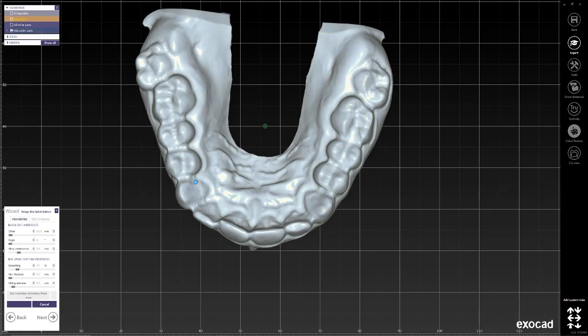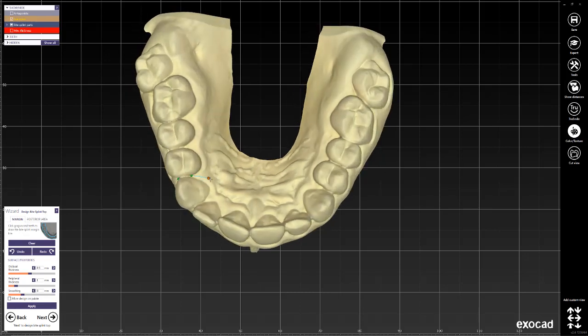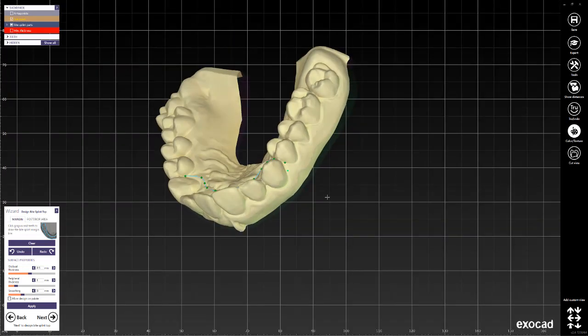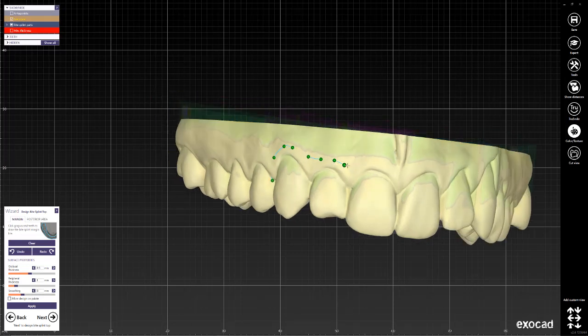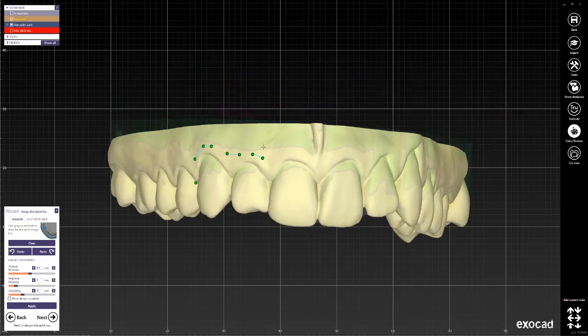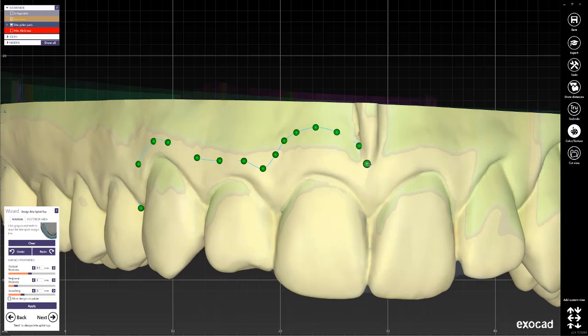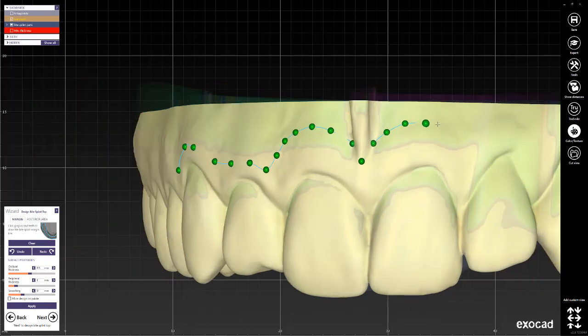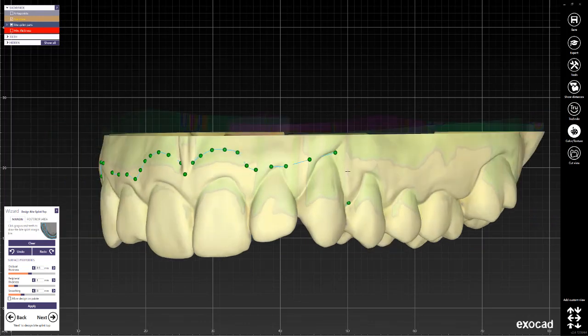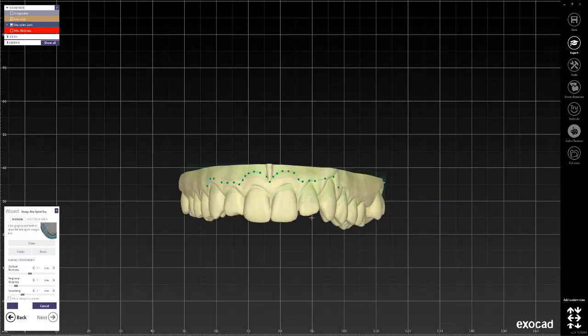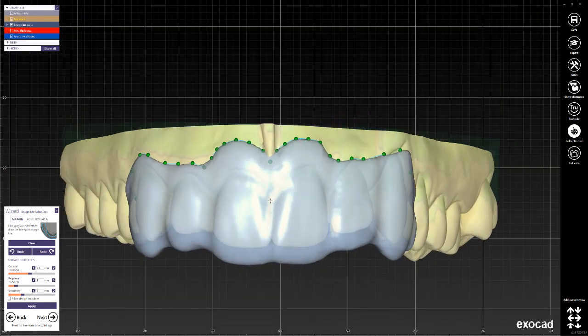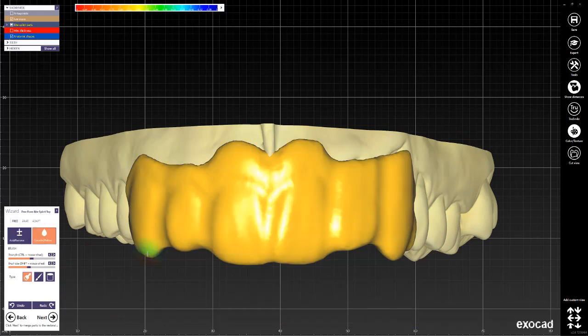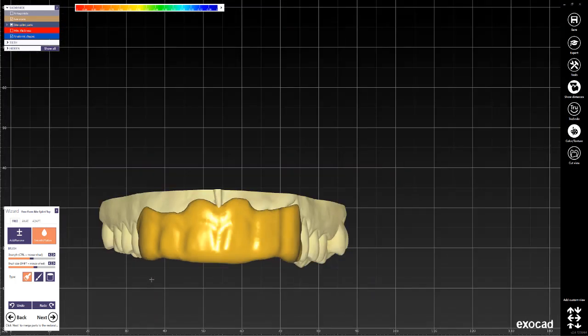So we get to this point and we'll go ahead and draw the splint itself. Now, not claiming to be a clinician here, I understand that there are some measurements that need to be taken into account when designing the splint, especially because at some point apparently you are supposed to design the splint I think three millimeters above where the window is, mainly because apparently there's some bone reduction that goes into that and so you're supposed to use that as a guide as well as a bone reduction guide. Now don't quote me on that, I don't know if that's right or wrong, I have no idea, that's just what I was told once. So we have our splint here. In the following step, you can freeform it all you want, take away some of the material, whatever you need to do. Let's imagine this is it.